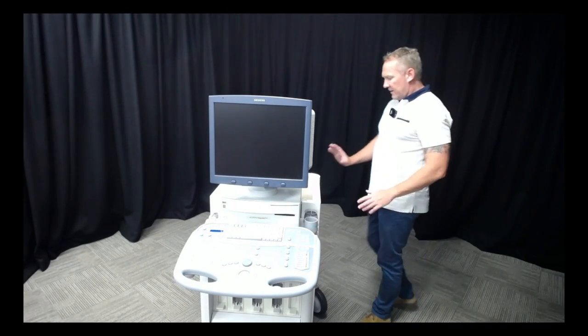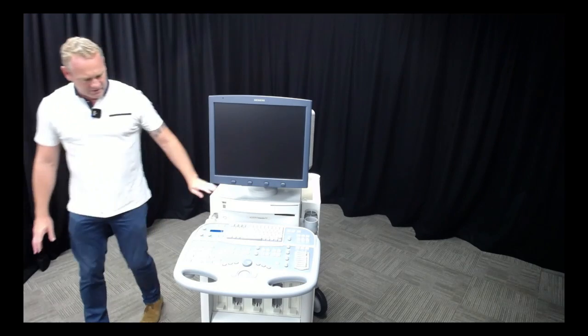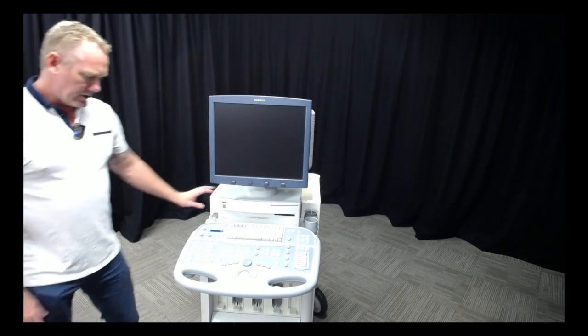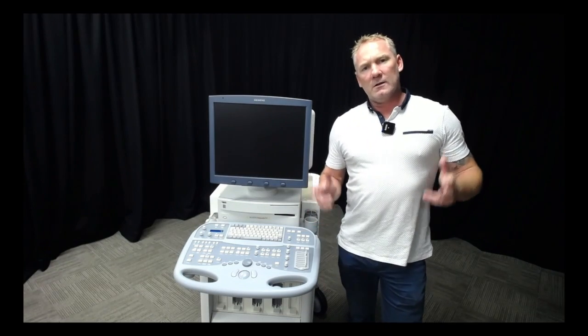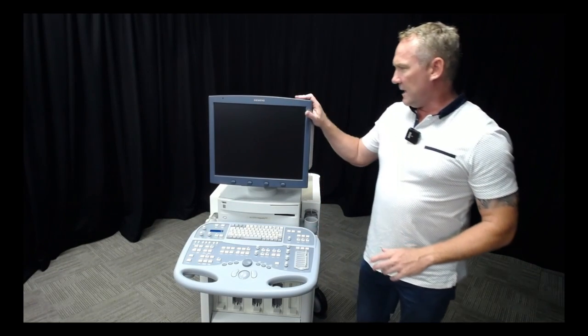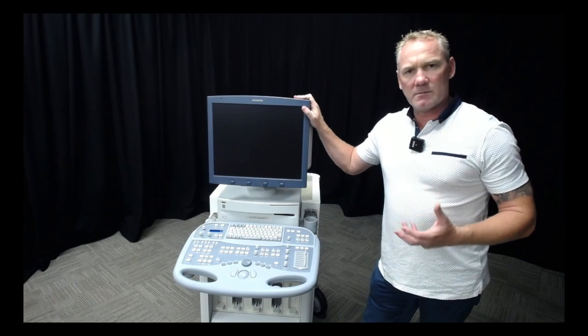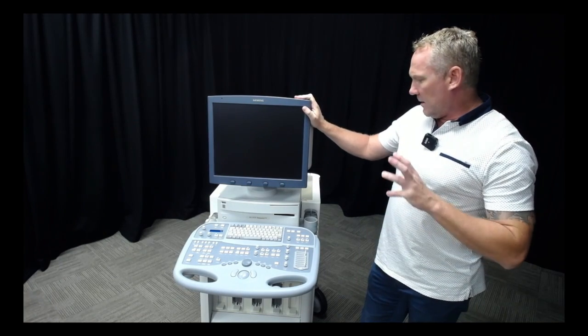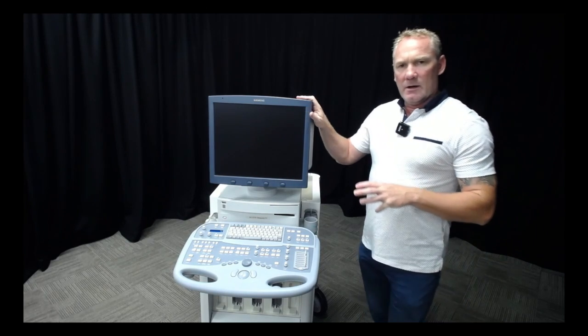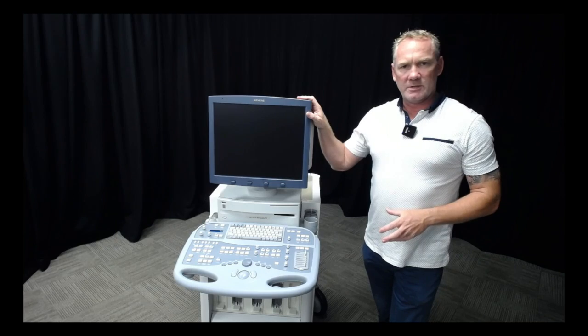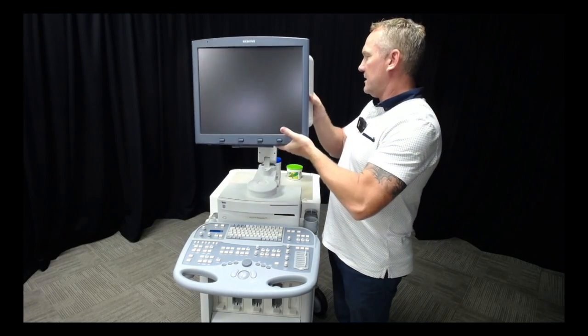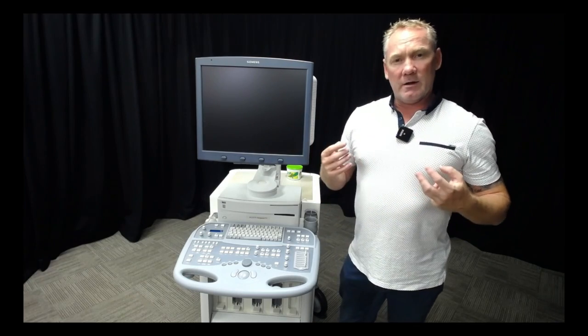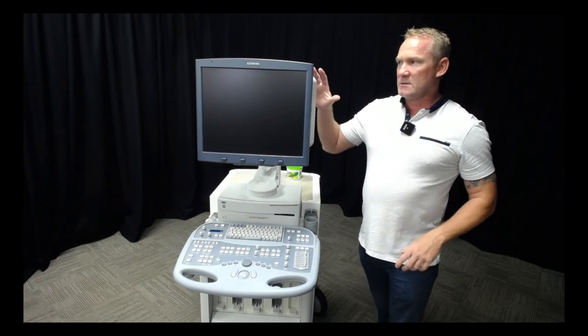This was a far more detailed clean, getting all the scuff marks off so it's in as good condition as we can get it. Because this is a machine we haven't used for a while, I'm keen to start using this for some training. I'm going to run through a checklist to make sure the equipment doesn't need any extra maintenance.